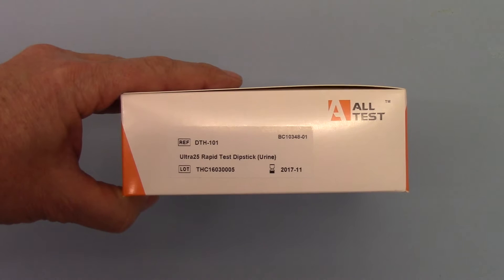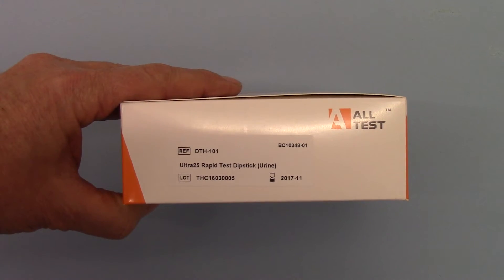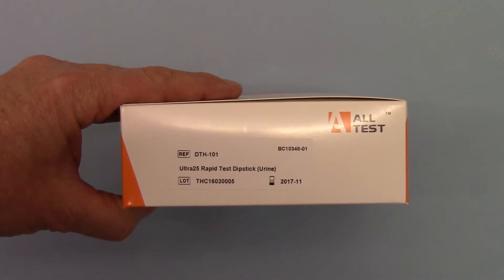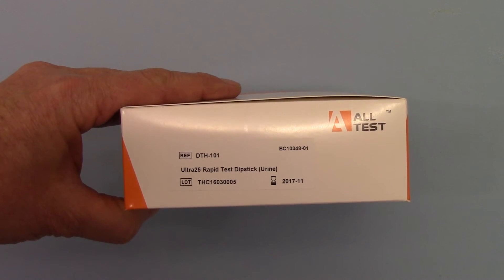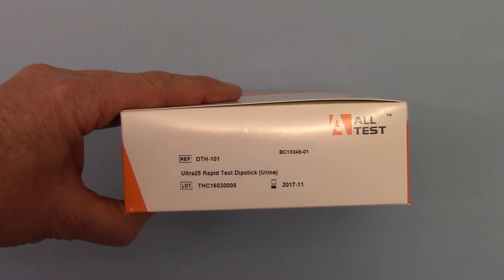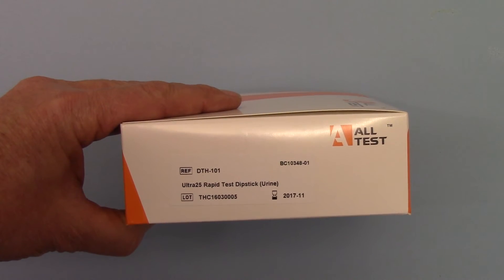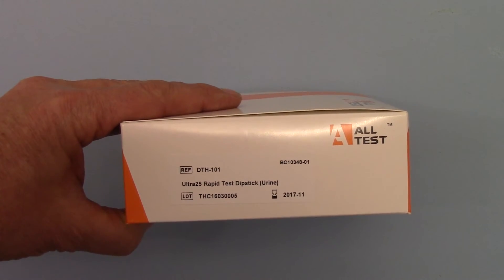The difference between this and the standard urine dip tests is that these are twice as sensitive, so they'll pick up at half the level and give a positive indication of cannabis exposure — detecting down to 25 nanograms, as opposed to the standard NIDA and SAMSA cut-offs which have traditionally been sold at 50 nanograms.